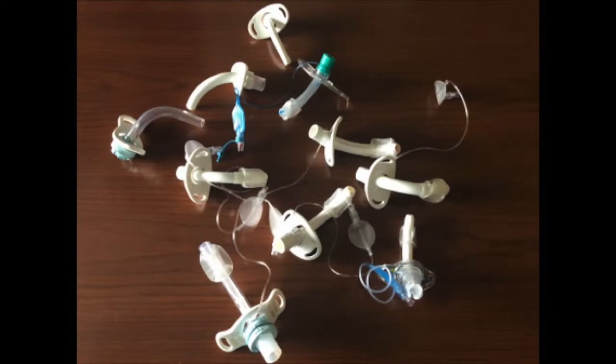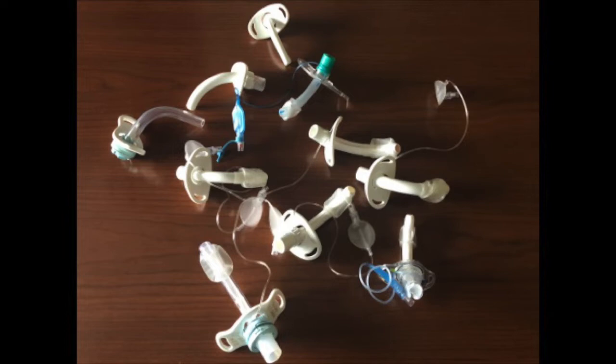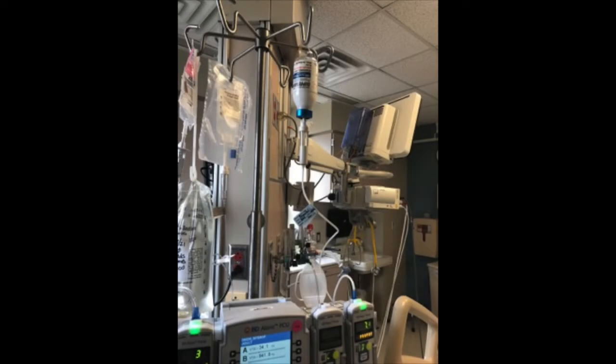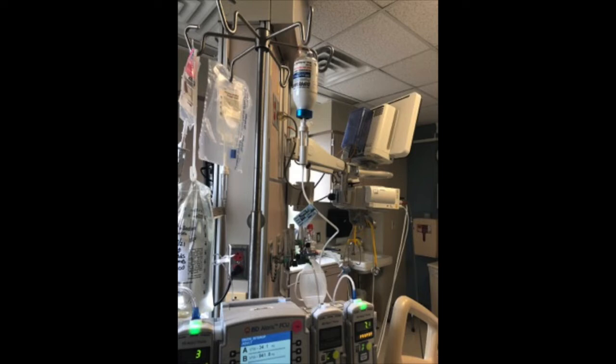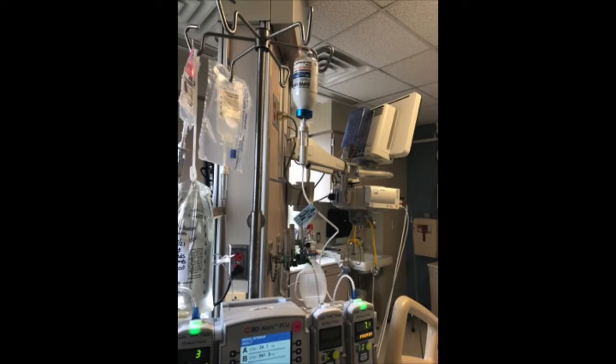Inability to trigger the ventilator in the setting of intrinsic PEEP is a common problem in mechanically ventilated patients that results in tremendous work for the patient and may lead to fatigue and sometimes eventual ventilator weaning failure. Alternatively, ineffective triggering can lead to patient agitation, which is sometimes treated with additional sedation, which may then prolong mechanical ventilation if not recognized as such. In this video, we will demonstrate the impact of intrinsic PEEP on the patient's ability to trigger the ventilator and explain how increasing extrinsic PEEP may facilitate patient triggering to relieve excess work, fatigue, and agitation.